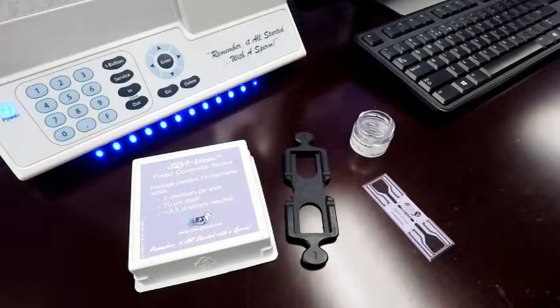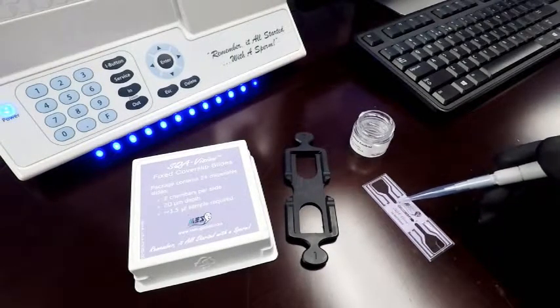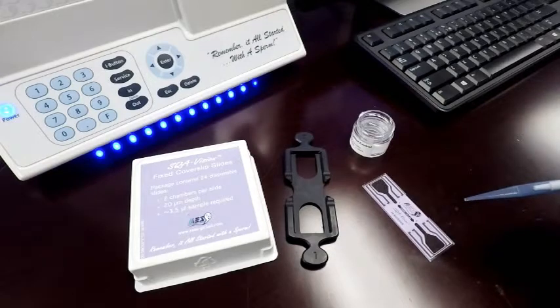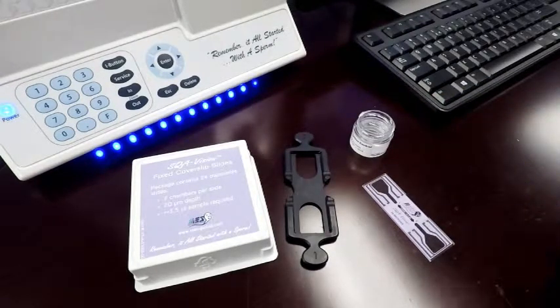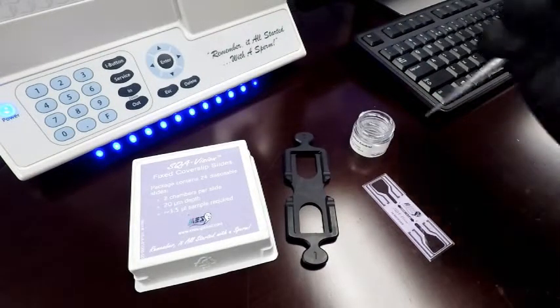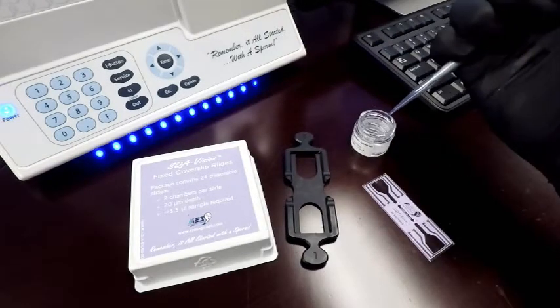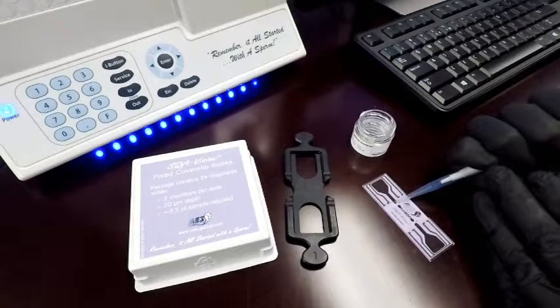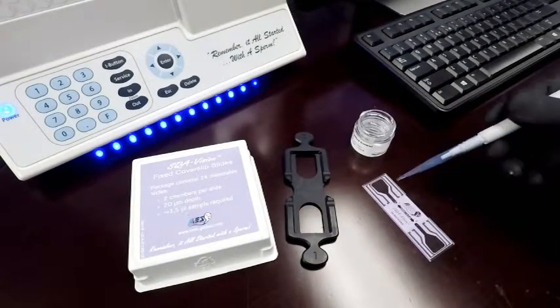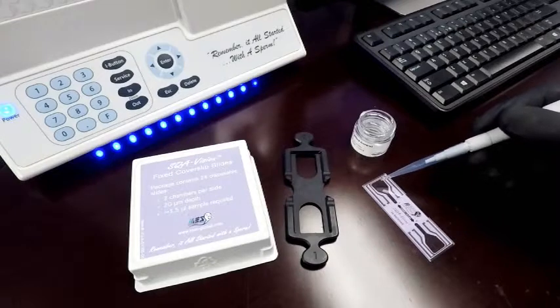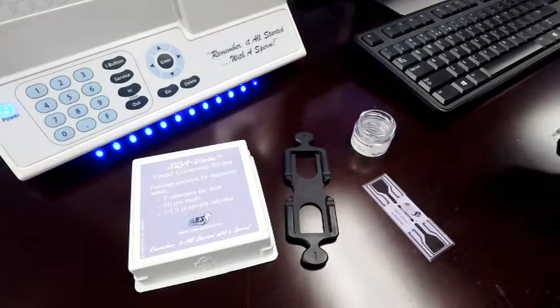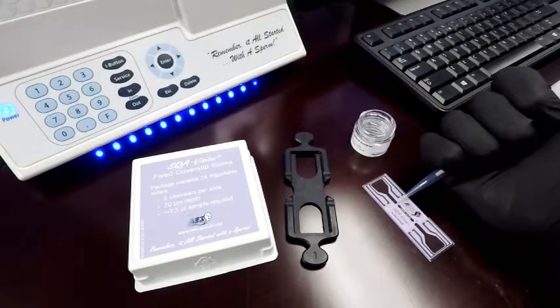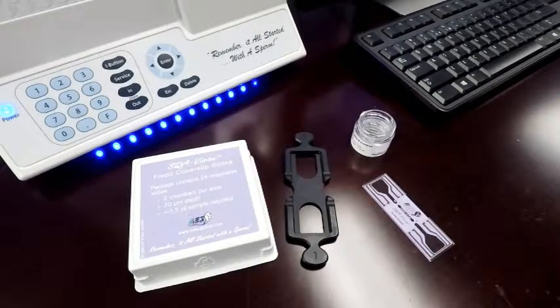To load it, there's a little semi-circle here. We're just going to take a little bit of our sample. I don't have live semen here but I'm using a quality control product which will illustrate everything just fine. So we'll take our 10 microliters and pop it right on the little semi-circle. You can actually watch the sample being pulled into the little chamber. If it doesn't fill all the way, just give it a little extra. Should be good to go.